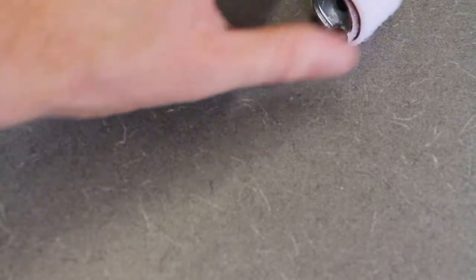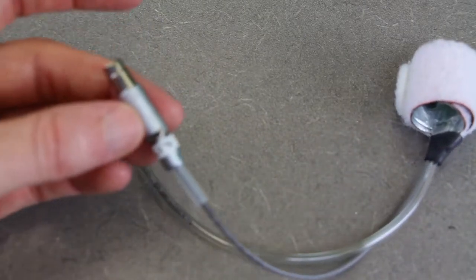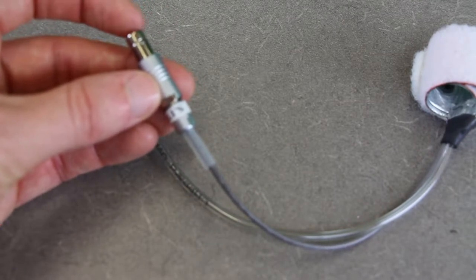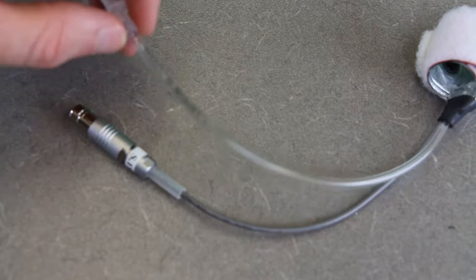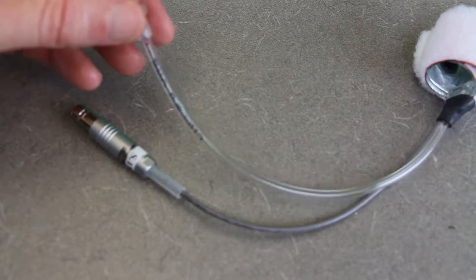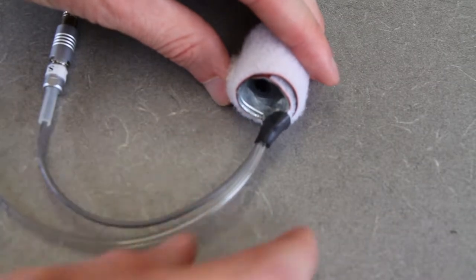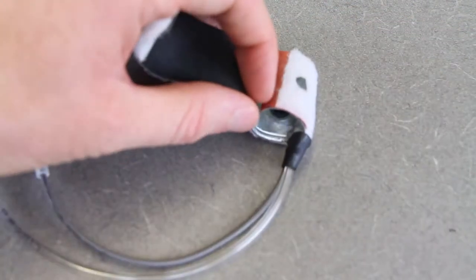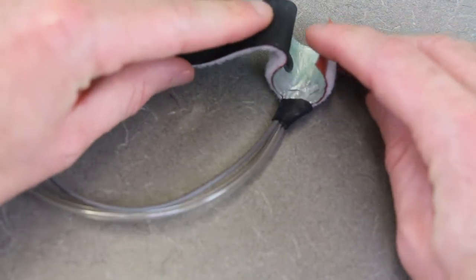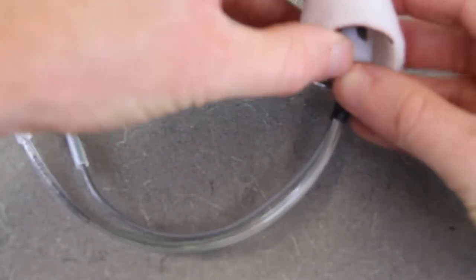This is the small finger cuff up close. It has a power connector where data goes to the wrist unit and eventually to the NIBP controller and LabChart software, plus a clear plastic air hose tube. You can see a shiny interior — that's the air bladder that fills up with air. You can also see these have a natural tight curl by design, which helps the cuff fit around the finger properly. Never open the cuff too much or you'll break the air bladder.